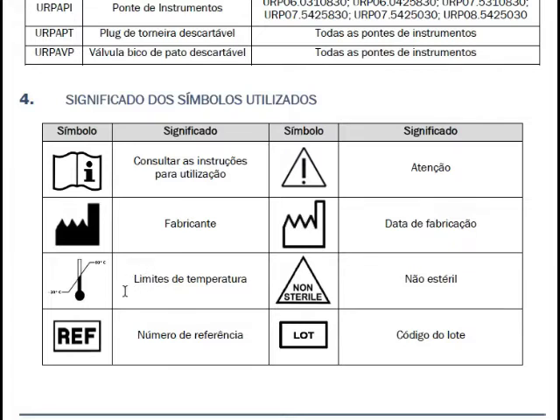Então, se você põe uma ótica desta dentro de um padrão de 8 graus a mais — observa bem — que com um pequeno espaço de tempo, a curto prazo, esta ótica vai dar infiltração. Portanto, é importantíssimo, principalmente depois de uma manutenção na ótica, que você detalhe isso e explique isso ao dono da ótica, ao teu cliente, que ela não suporta 38 graus. Você mostra a documentação técnica — é apenas 30 graus.